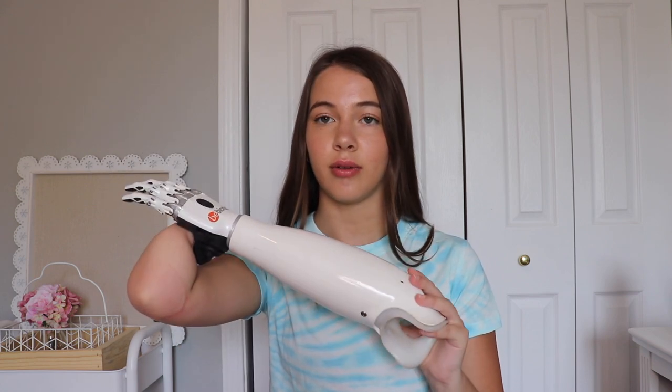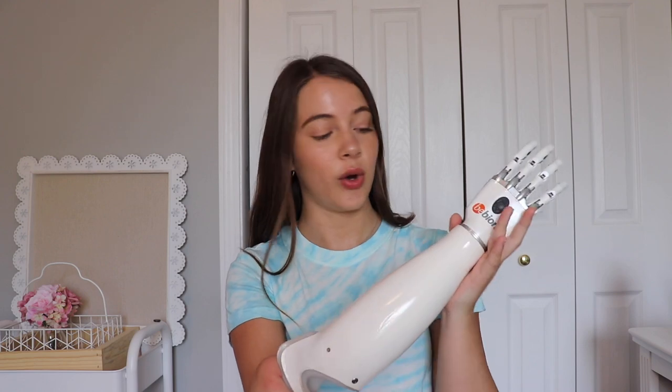I have an older video from a few years ago about one of my older prosthetic arms, where I talked about how I've grown up without prosthetic arms and kind of taught myself how to do everything with just my arm and my hand. The prosthetic arm would kind of get in the way and make things harder. That prosthetic arm was also skin-colored, so when I got this one I really didn't want people to think that I'm trying to pretend I have two hands or that the other hand is real. I liked the white coat — it looks robotic, so people don't think I'm trying to pretend anything. And it's just really cool looking; it reminds me of Star Wars, and I'm a huge Star Wars fan.